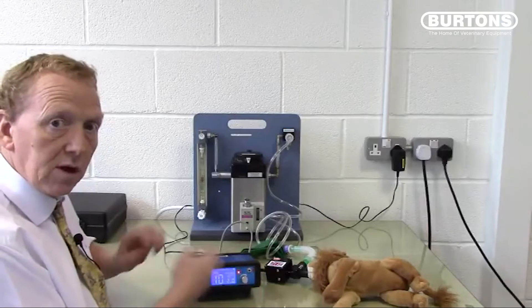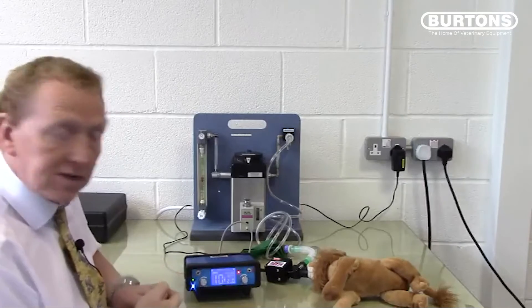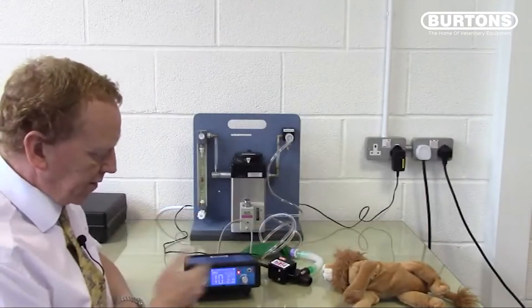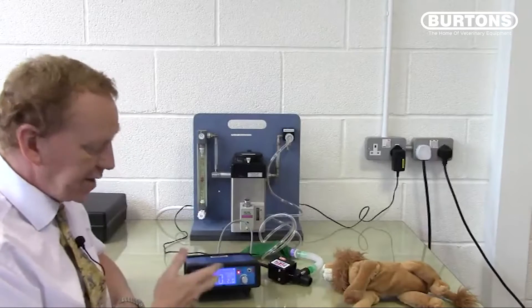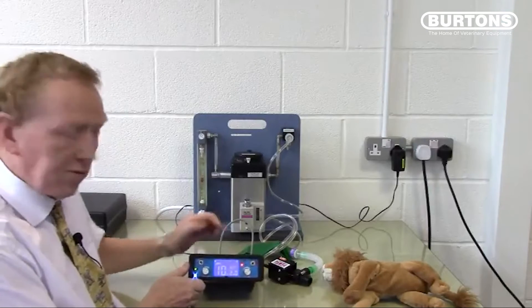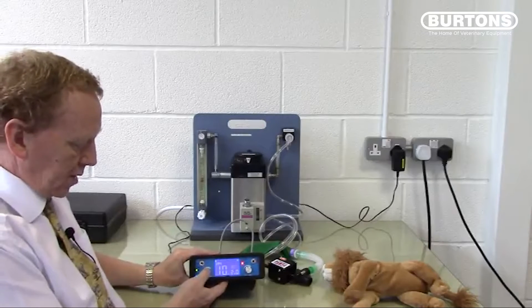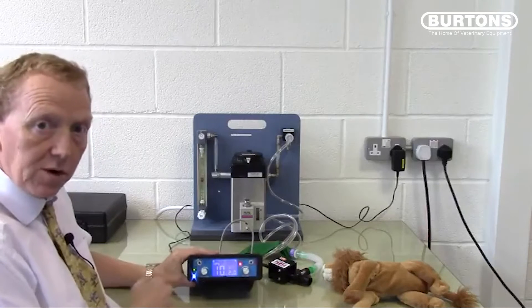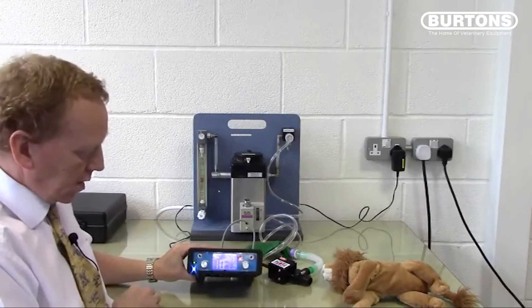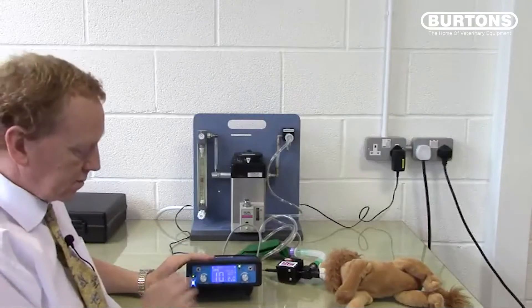Beeps and alarms may each be allowed or disallowed independently. There are very few alarms on the SAVO4. One is patient disconnect — if the patient becomes disconnected, the ventilator attempts to inflate the animal and sees no back pressure, then sounds a no-breath alarm displayed on the screen. To cancel the auditory alarm while leaving the message on screen, press and hold the left hand knob. Reconnecting will allow inflation to occur and the alarm will self-clear.